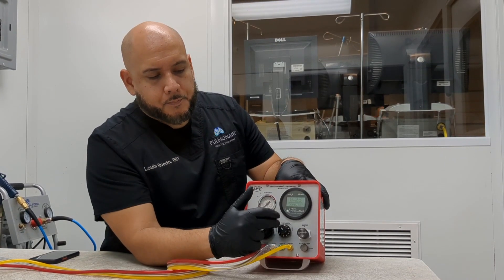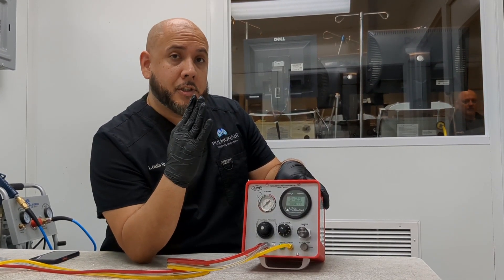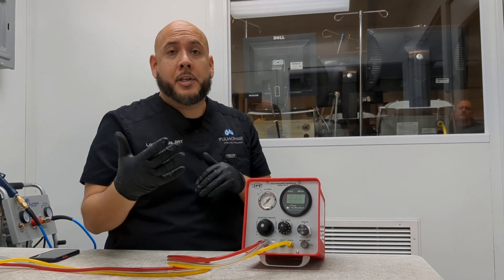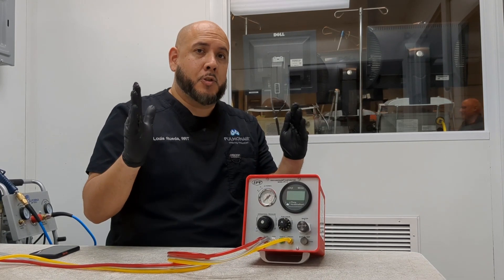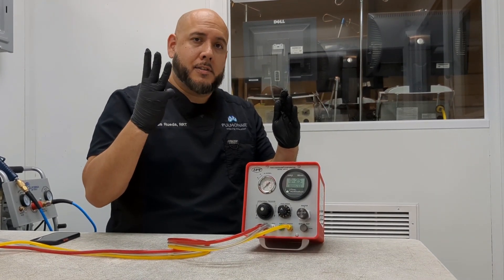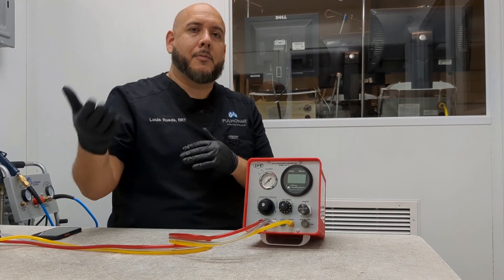We initially start with our arrow at the 12 o'clock position. We're going to want to do a 15, upwards of 20 minute treatment. If it's a 15 minute treatment — which is gold standard — you can break this up into three phases, or you can break it up into as many phases as you need.